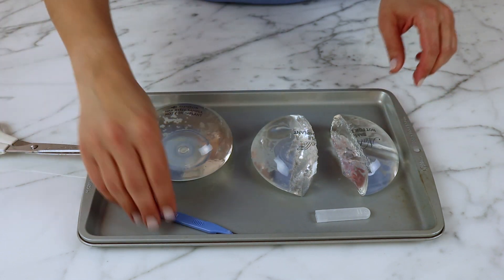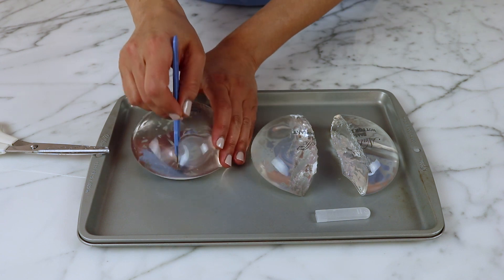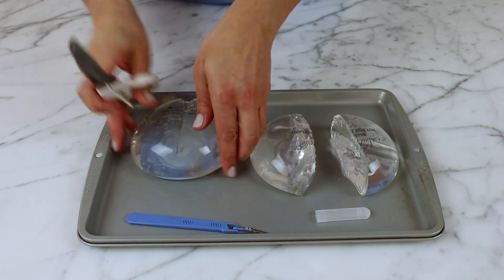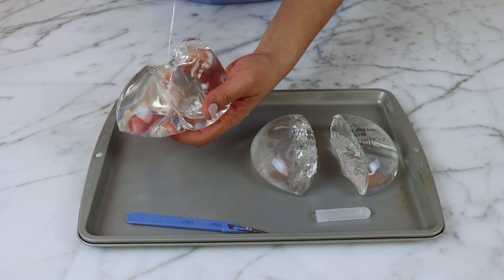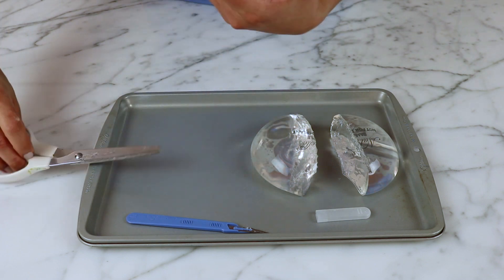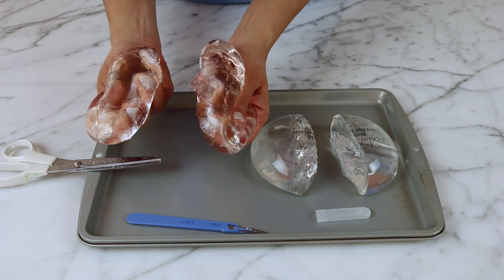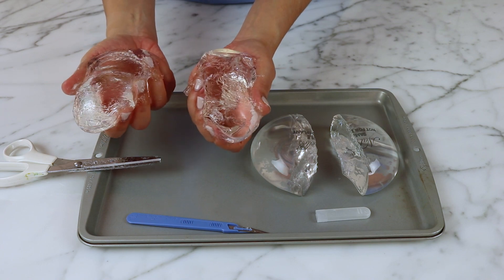Just for sake of comparison, I will cut also this other breast implant from a different company. I'll finish the cut with scissors. It's a little gooey. Again, here we have a cohesive silicone gel that keeps its shape.